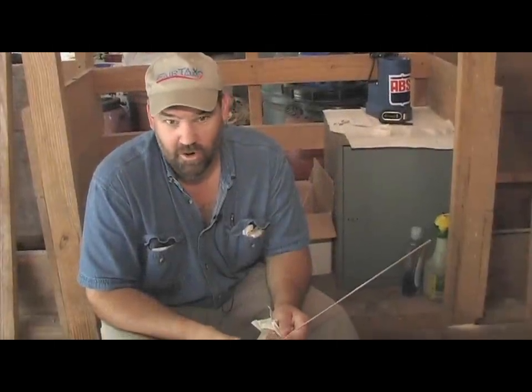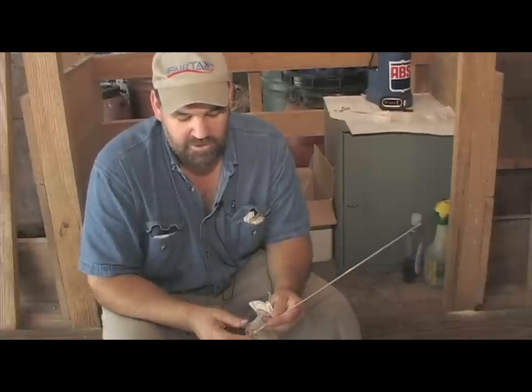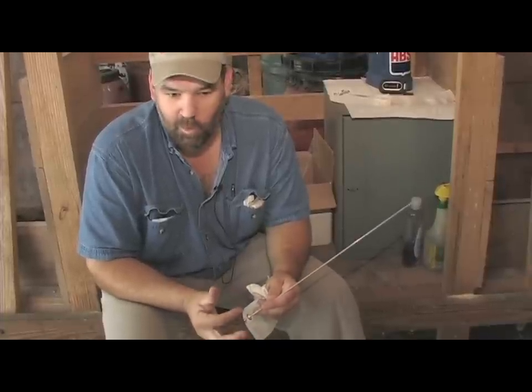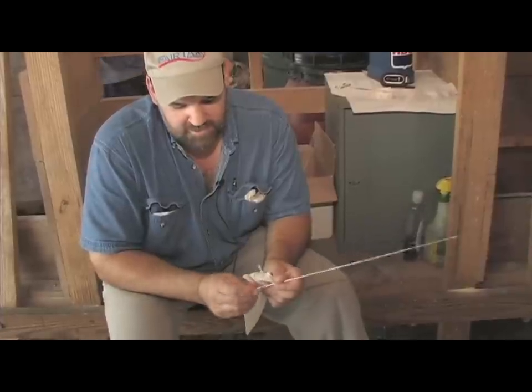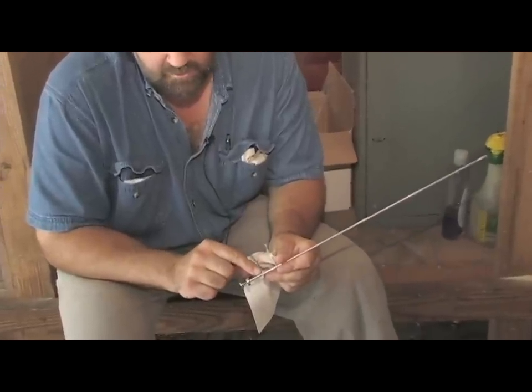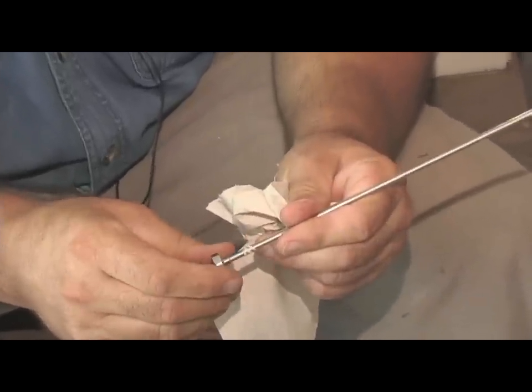The purpose of this is to show you the straw. I've just used this thing, wiped it down a little bit, cleaned it up, and I was going to show you how this thing worked now that we've used it one time. But this thing's got some small threads right here, and when you're putting this plastic sheath on, you just slide it down and thread it on like that. It keeps it in place.